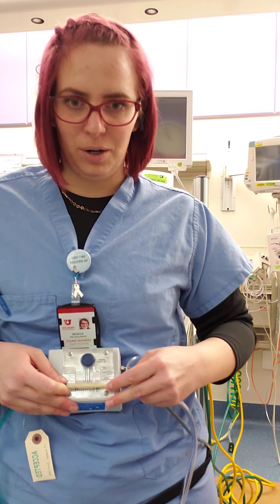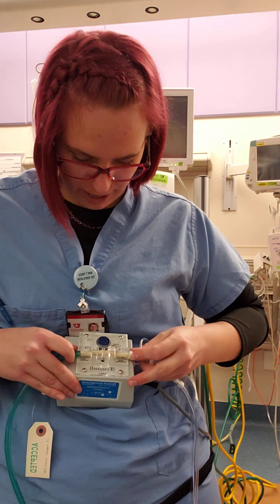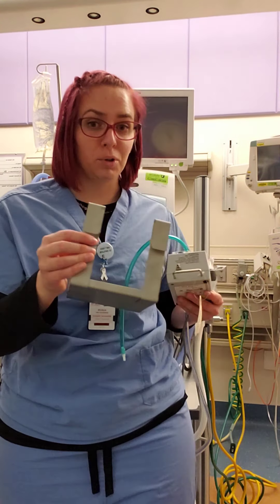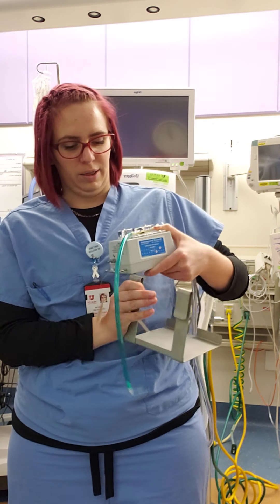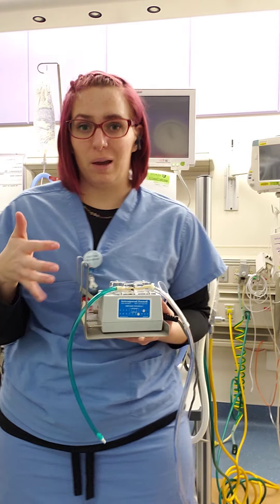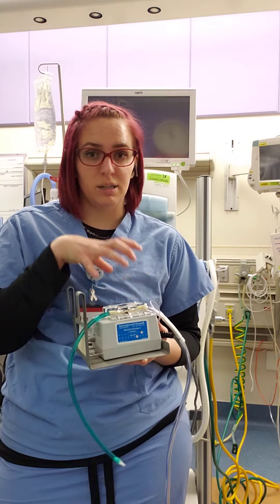Moving from the cartridge out, this is when our little box comes into play. How I remember which way it goes: this clear line is my circuit, this is my patient — or the other way is basically just connecting the dots. We can apply this to our purge line, and then our interrupter will sneak under here; push the button and sneak it in like that. After that you can set this aside. There is a tray that goes at the head of the bed — I like to put a burp cloth or a diaper down and then put this on top so it's secure to the bed.